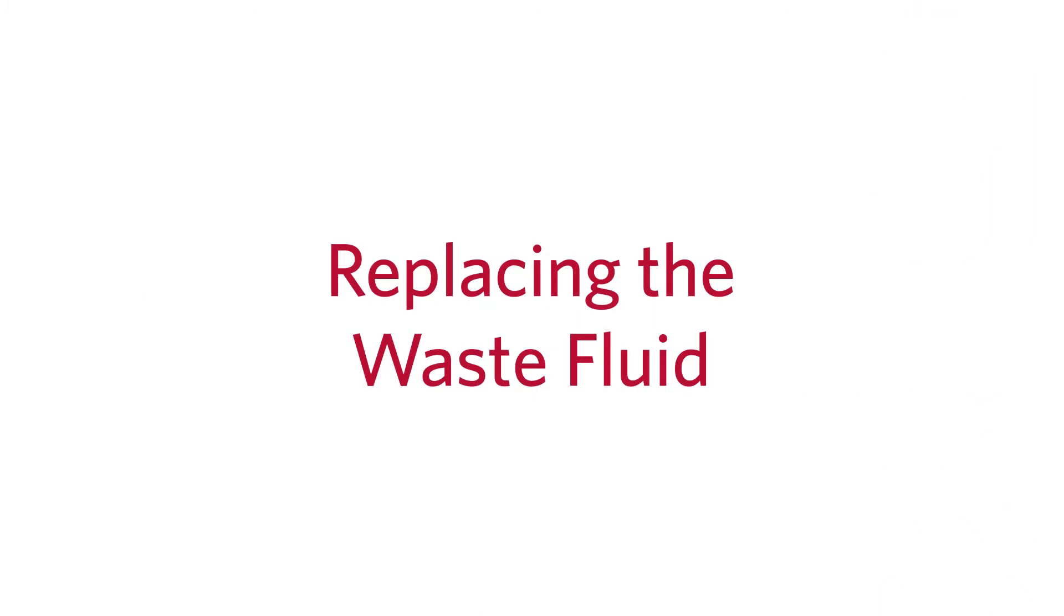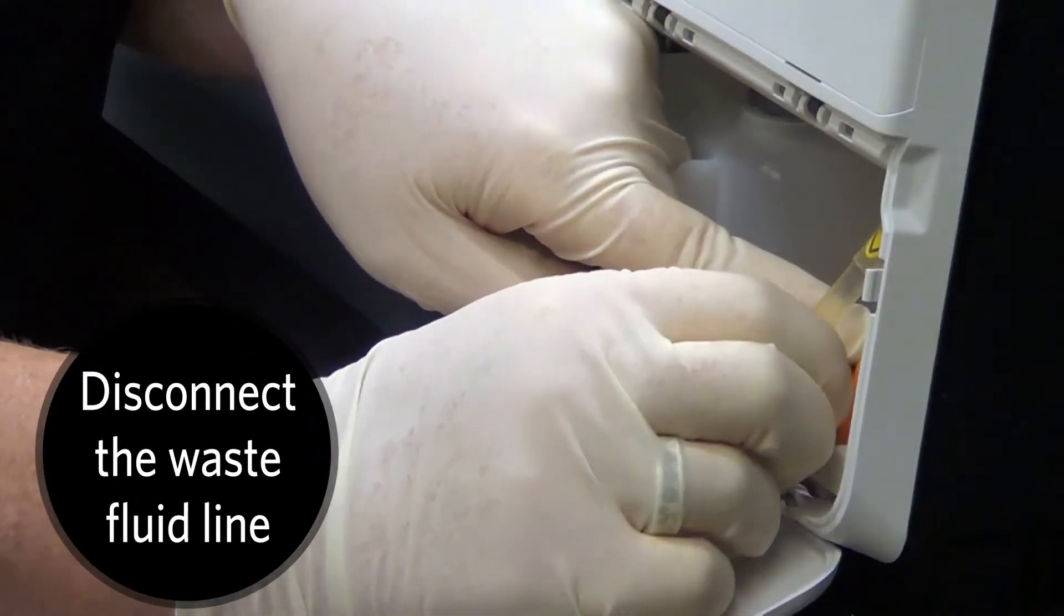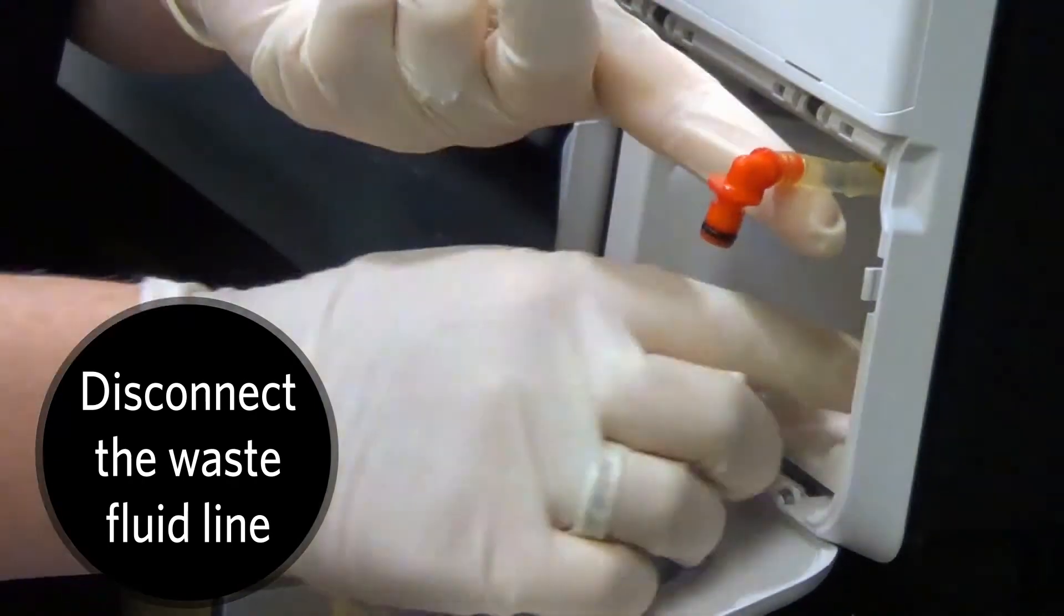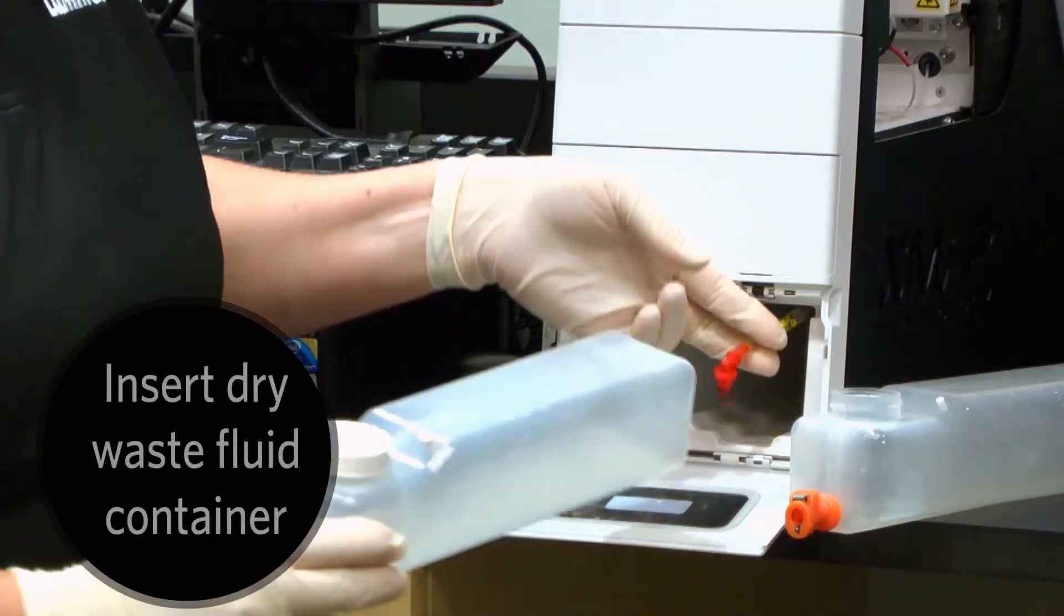Whenever the waste fluid container is full, empty and replace it with a dry waste container. First, disconnect the orange waste fluid line from the waste fluid container on the right and remove the container.